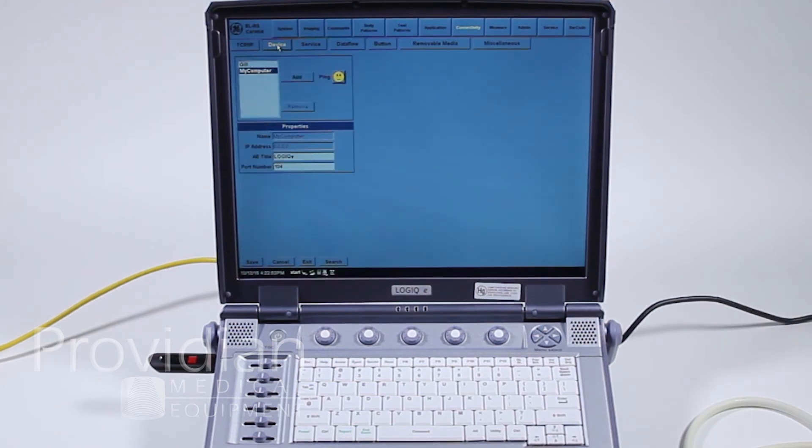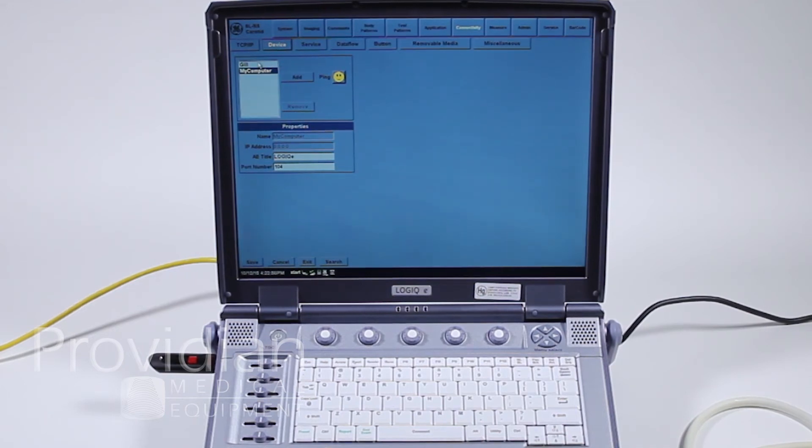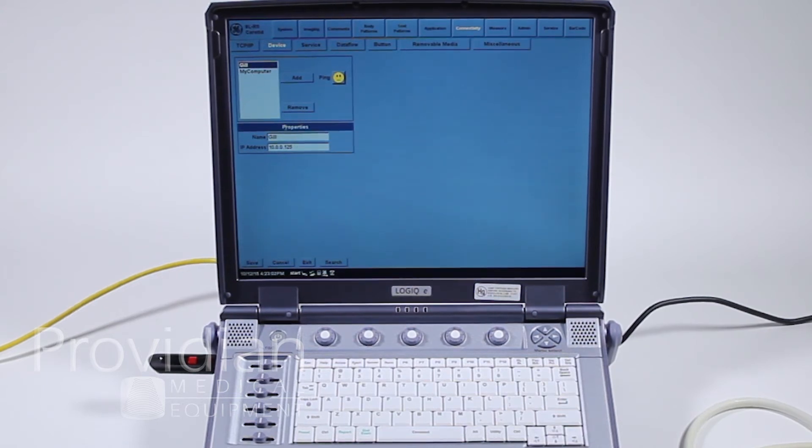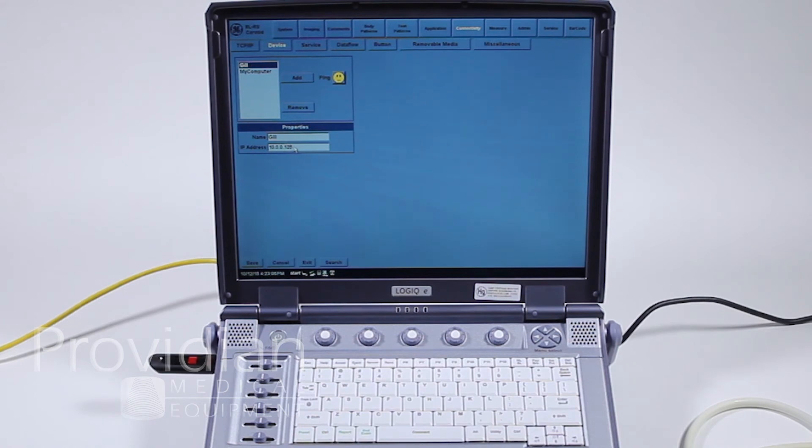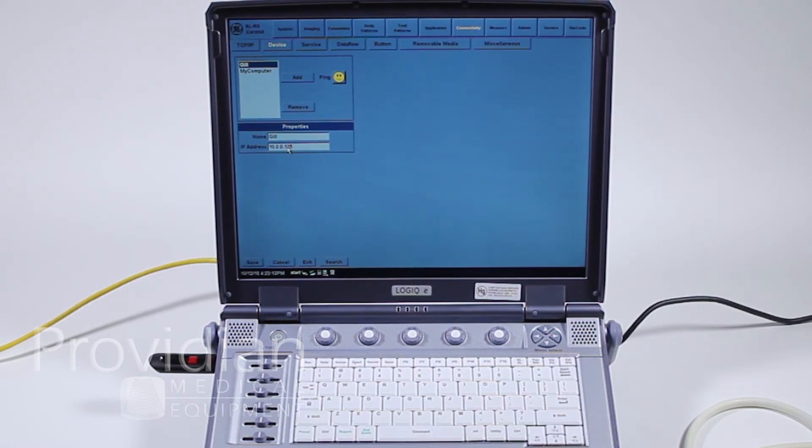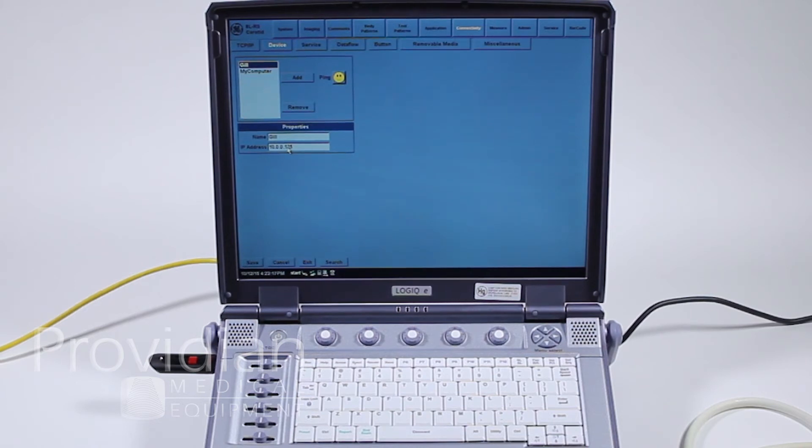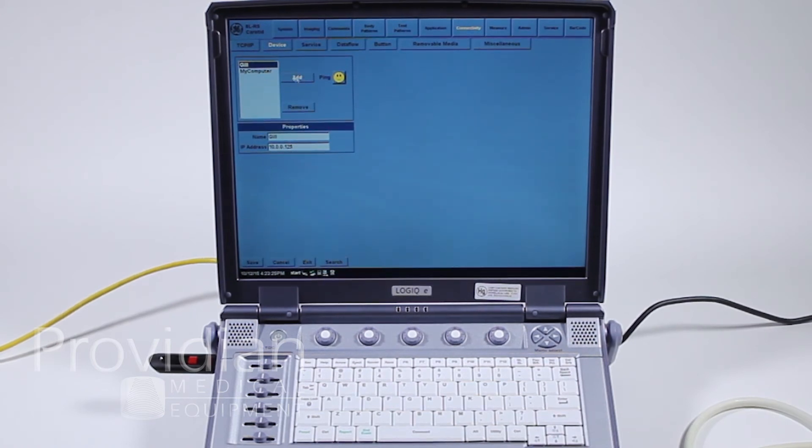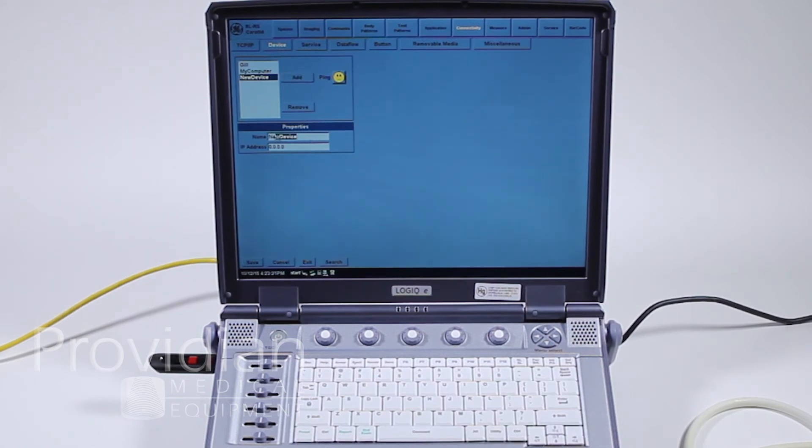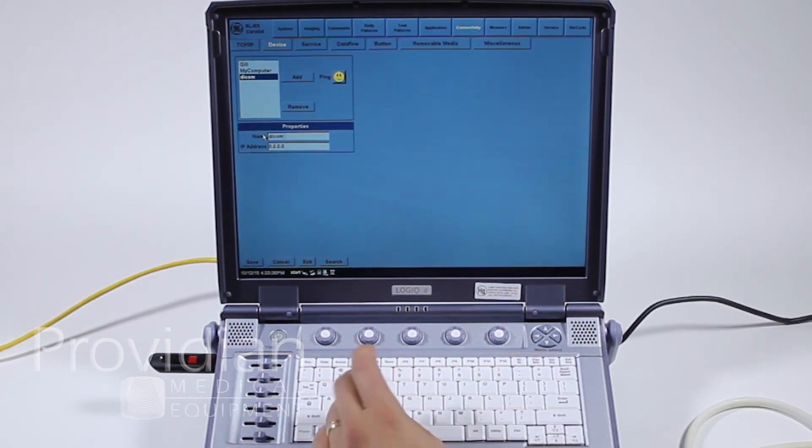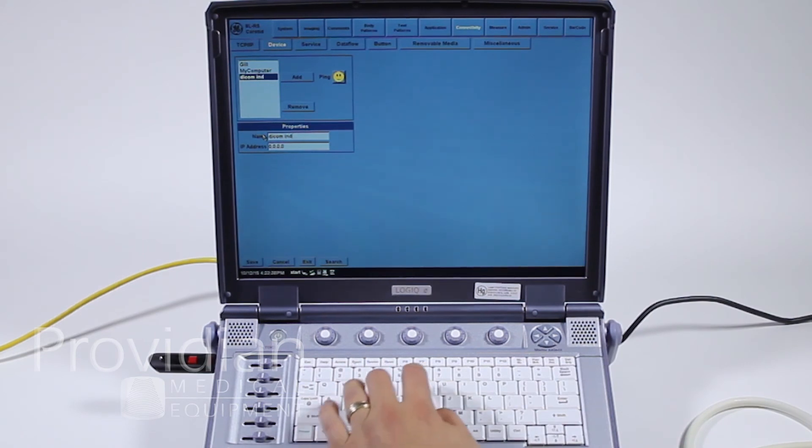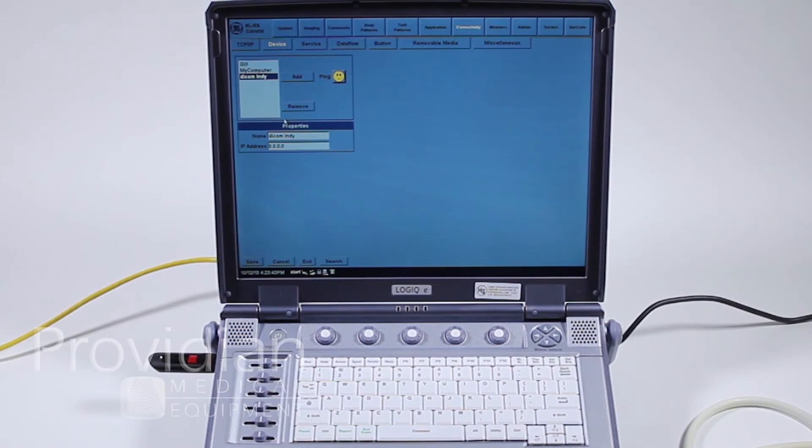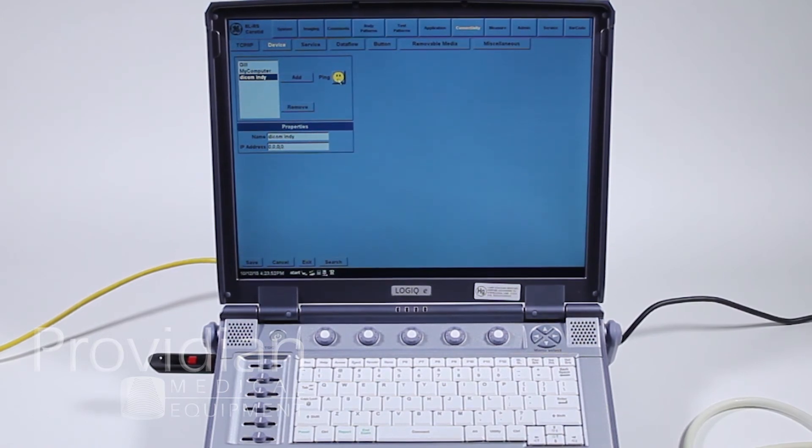Next thing we need to do is set up a device. What I did is I added a device that is my computer on the network. I found my IP address, which I got from a DICOM software. It tells me the IP address of that server by going into that DICOM software. In order to get the information you need and where to send your DICOM images, you have to receive an IP address from the administrator or the people who hold the DICOM server. In order to add it, you would just simply click add, and it would give you this name. Name the device. You could say DICOM Indy for Indianapolis, saying that was your DICOM server in Indianapolis.